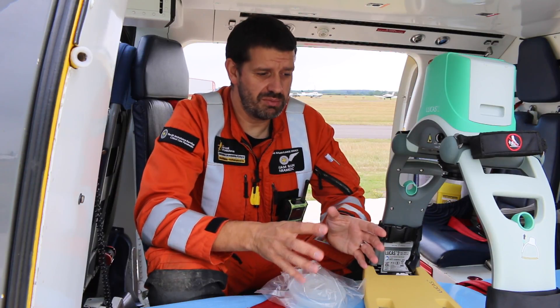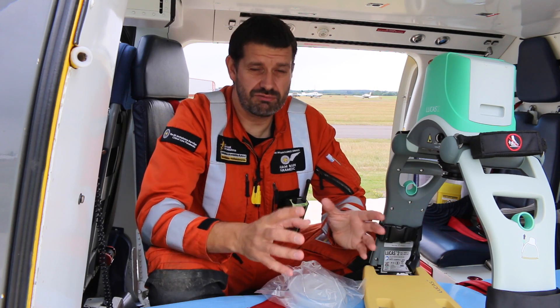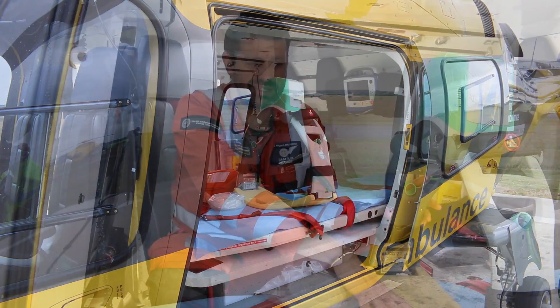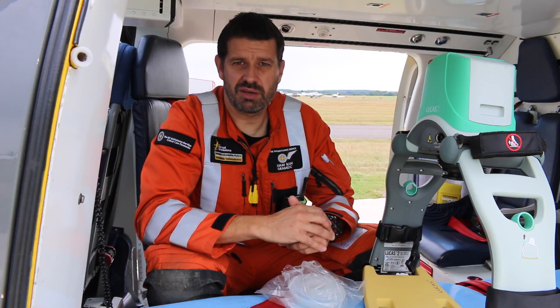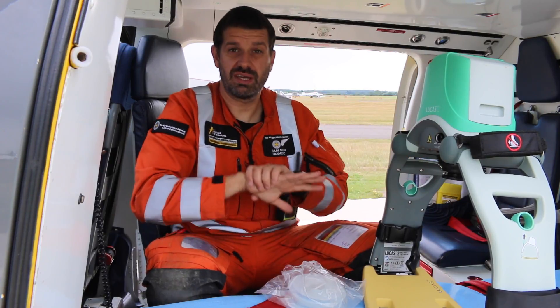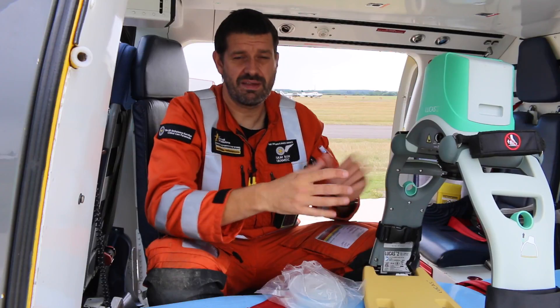The other benefit to this piece of equipment is that we can actually continue to perform resuscitation if required in flight. As you can see, it fits in the aircraft quite nicely, which again frees us up to do other things that may be required. Trying to perform effective chest compressions in this small cramped environment can be quite tricky manually, so this piece of equipment really comes into its own in that environment.